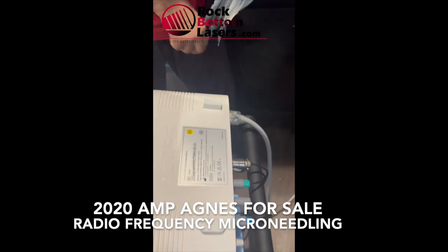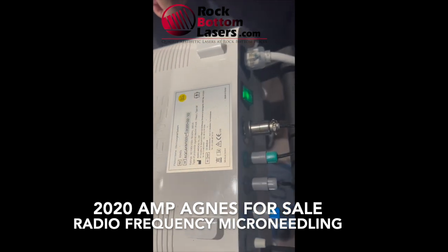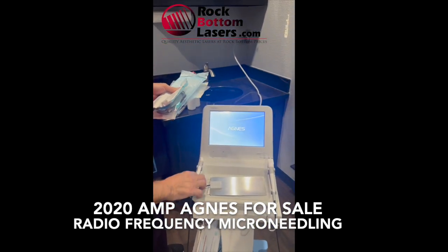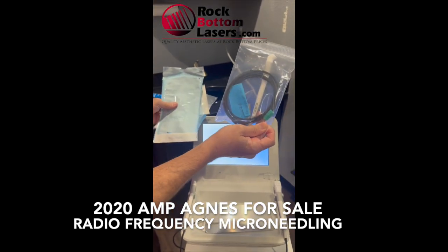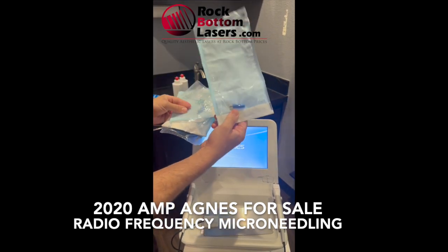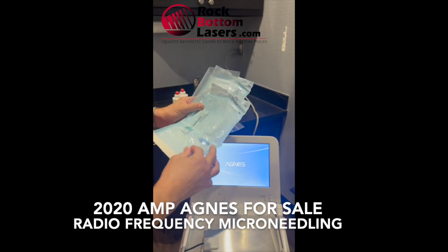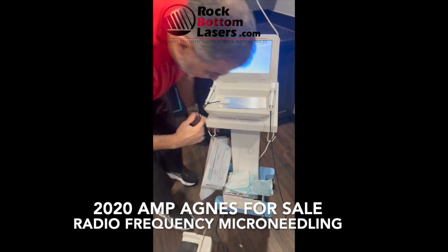Here's the serial number and I'm turning it on — it's plugged in. We have one of the heads here, and here's the second one; we have an extra one as well. Then we have the attachments that go with it — we have three of these. These have been autoclaved and we autoclave them each time, as recommended, to keep the device clean.